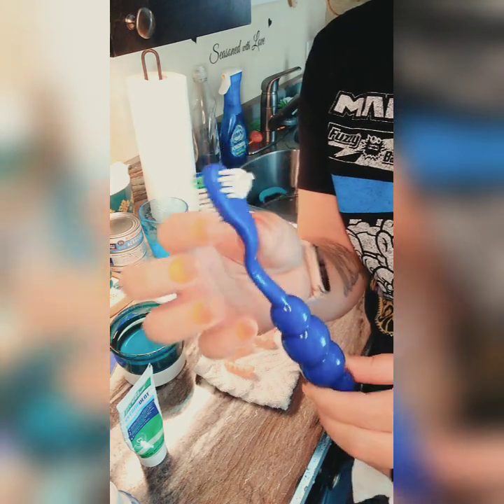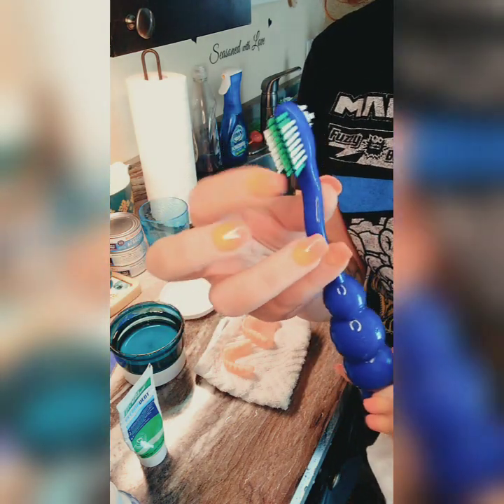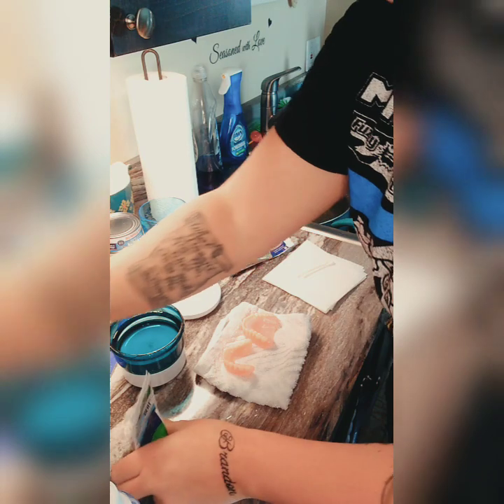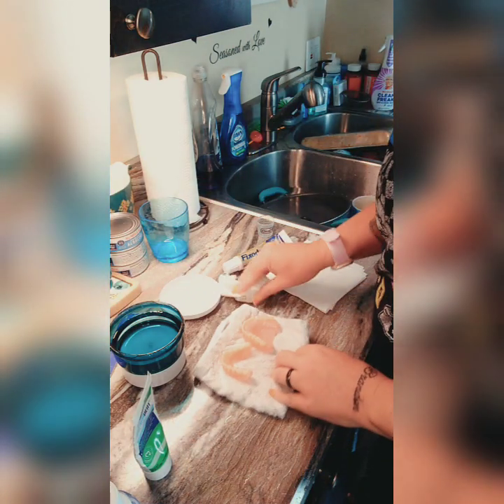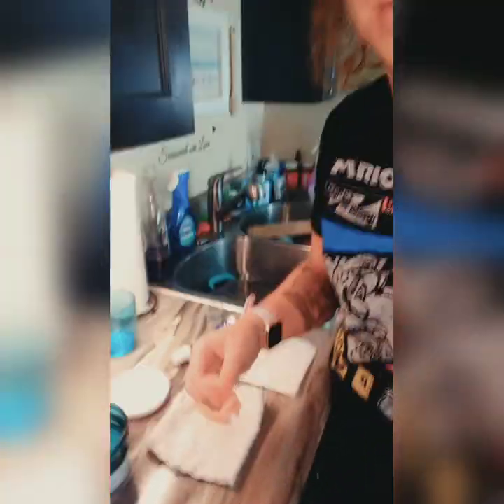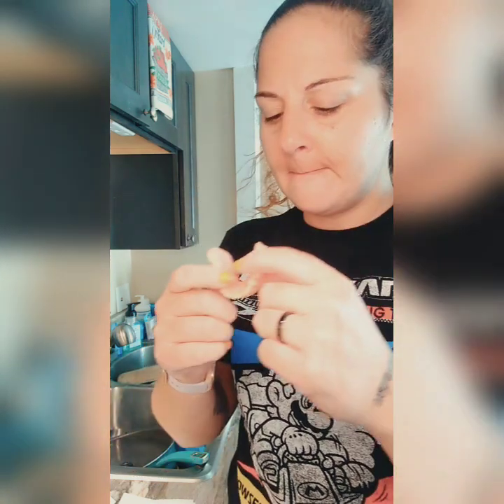If you use the liquid crystals, you can use your denture brush and toothbrush at the same time, which is amazing. I'm going to check to make sure my adjustments are correct for my bottom. It still hurts right here — like a mother.